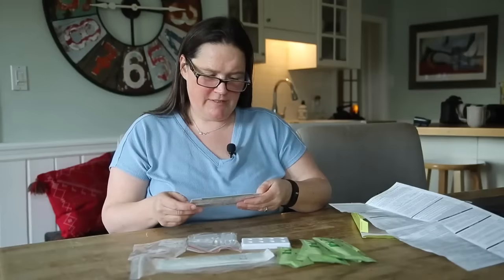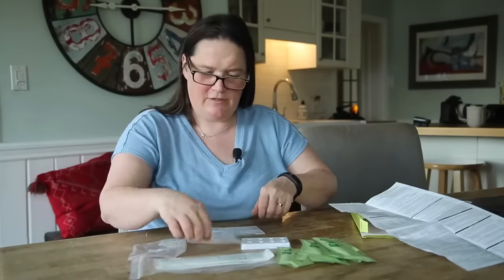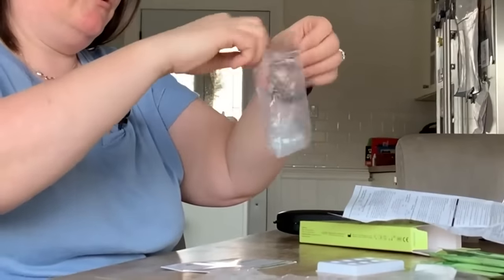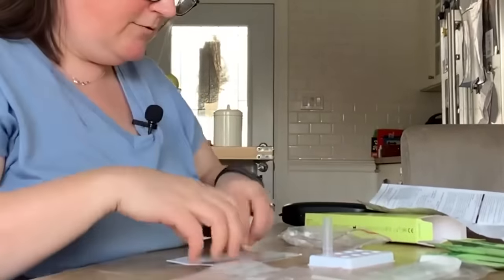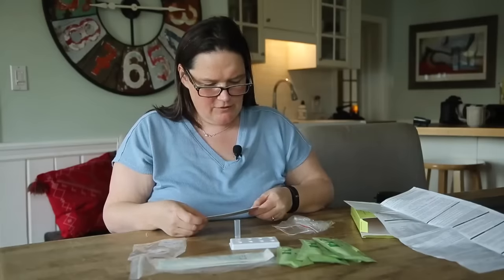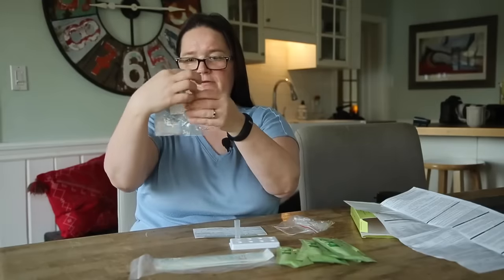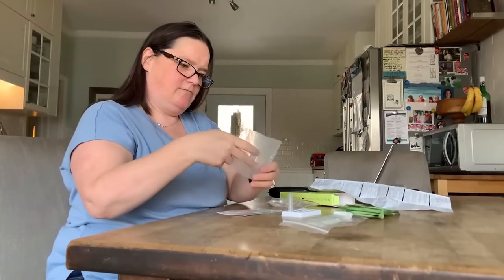So before collecting the sample, place the extraction tube into the tube stand so it stands up straight. Here are our extraction tubes. Let's get one out and put it in here. Step 1.2: gently mix the extraction buffer bottle. Here's the extraction buffer bottle. We have five of those in here as well.